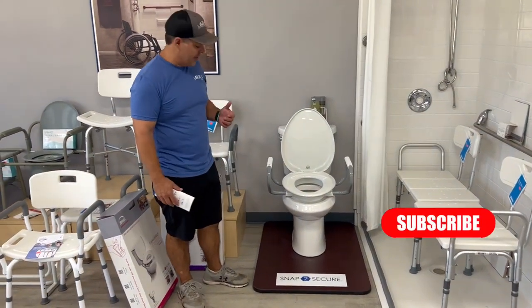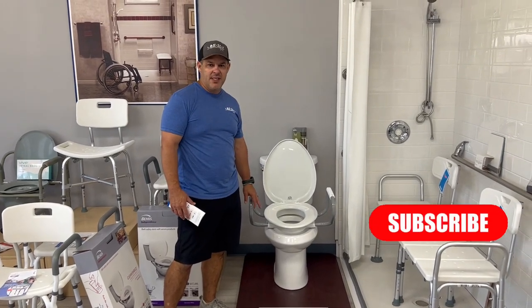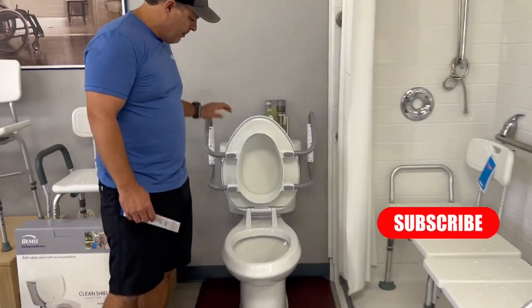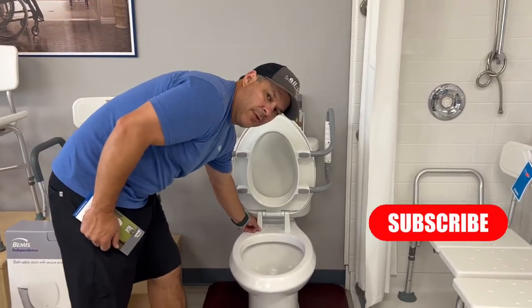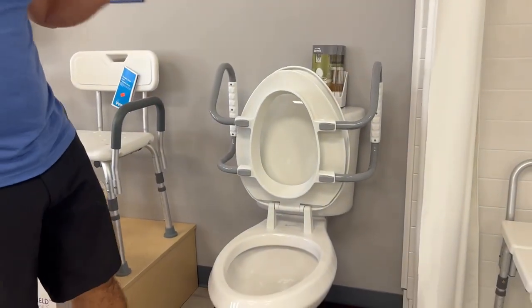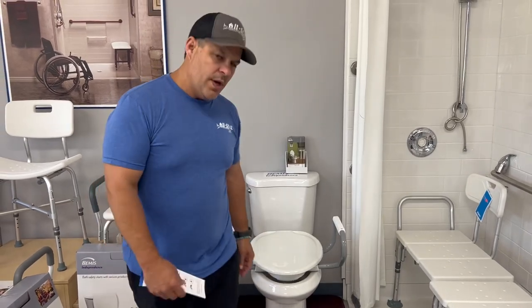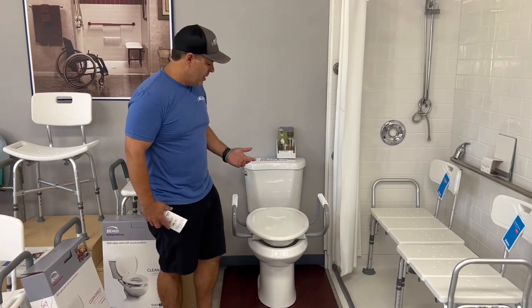What makes it different from everything else is the way it's built and mounted to the frame of a pre-existing commode. As I raise this up, you'll see that the seat is mounted onto where you mount the regular commode into the brackets. Everything comes with it — you mount it just like you would a commode seat, but it has a three-inch rise. You can add armrests and it has a seat top, so it doesn't look like a medical device.